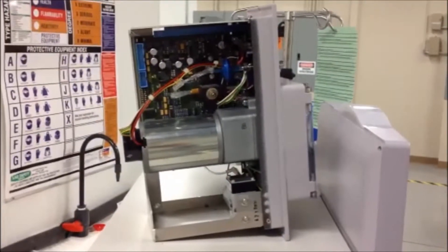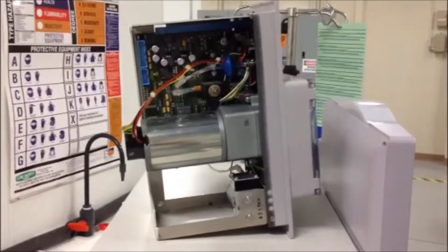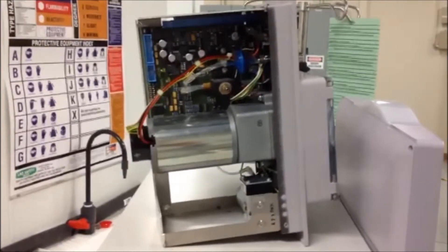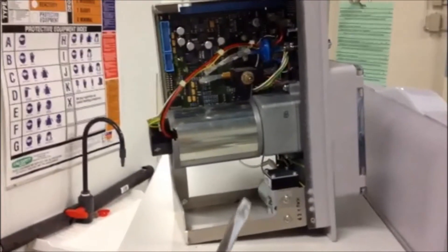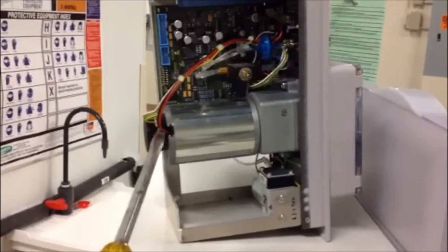This is the side view of a blood pump module that has multiple elements. The most important element we need to see is the motor, and that motor runs with two wires.